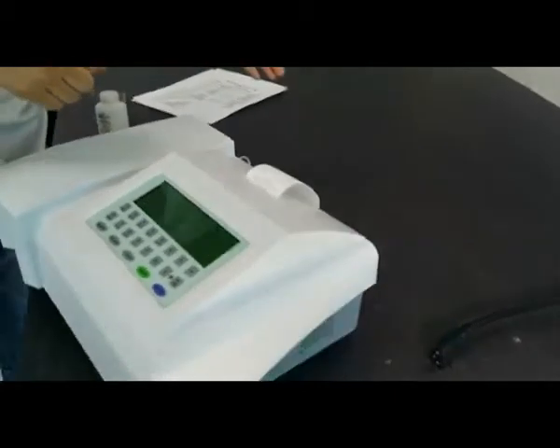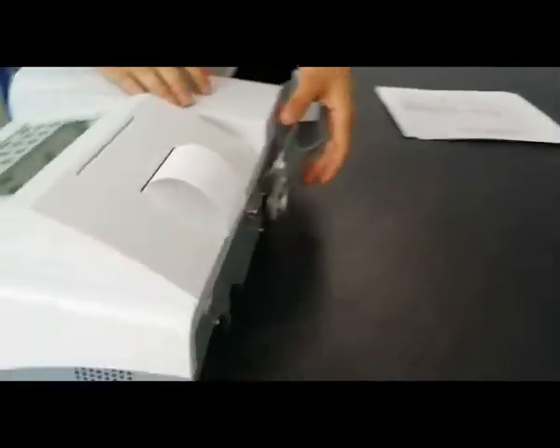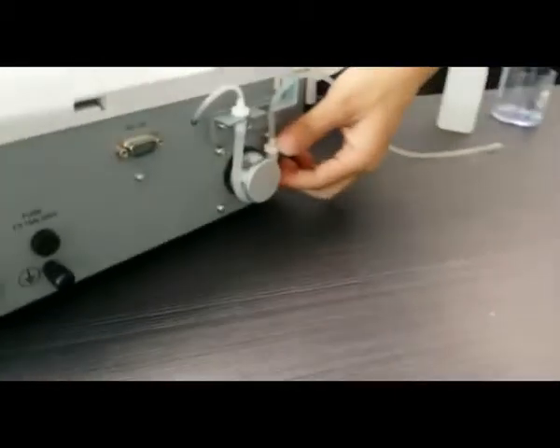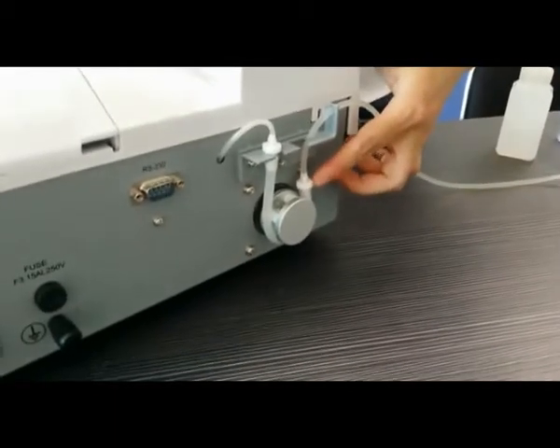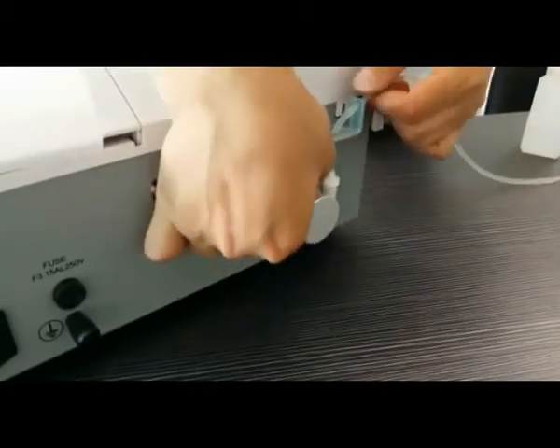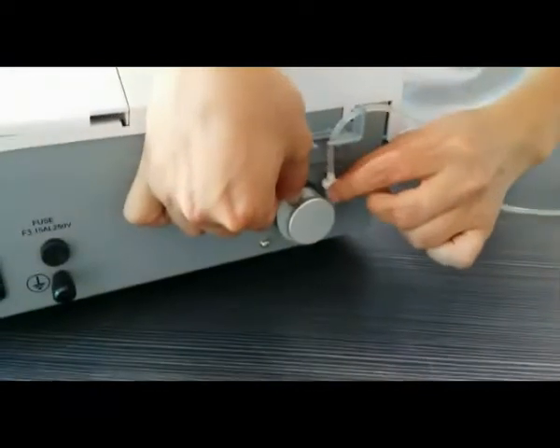First, when you fetch out the machine, pay attention to the pump tube. In order to protect the pump tube, we always put the pump tube here.